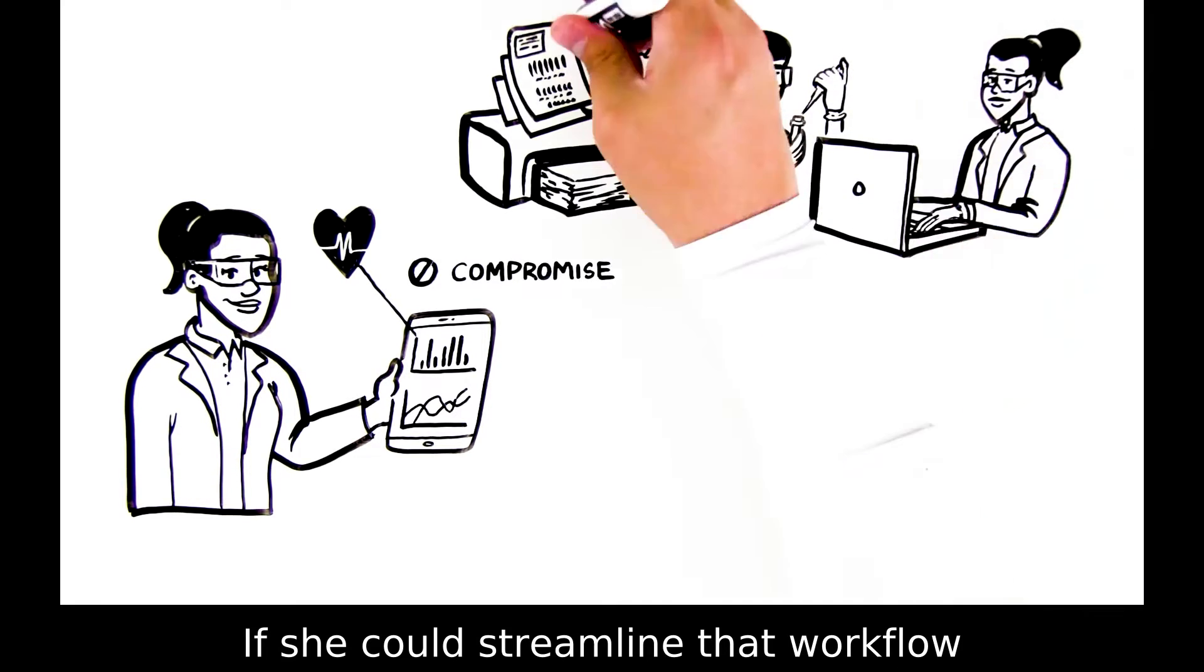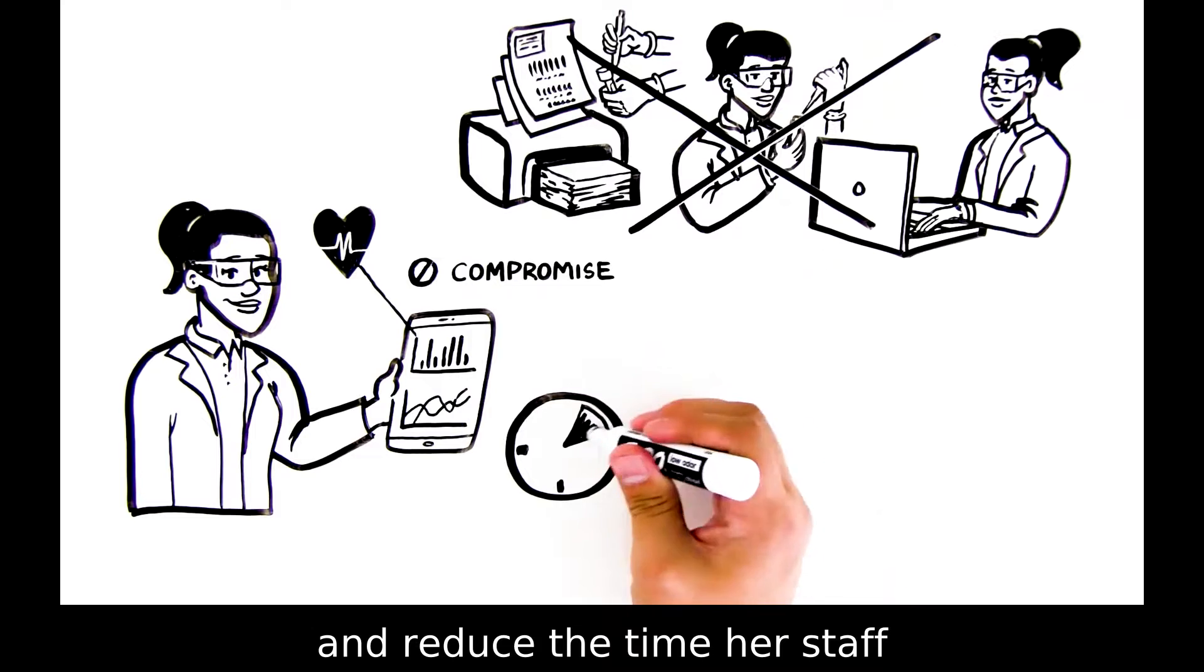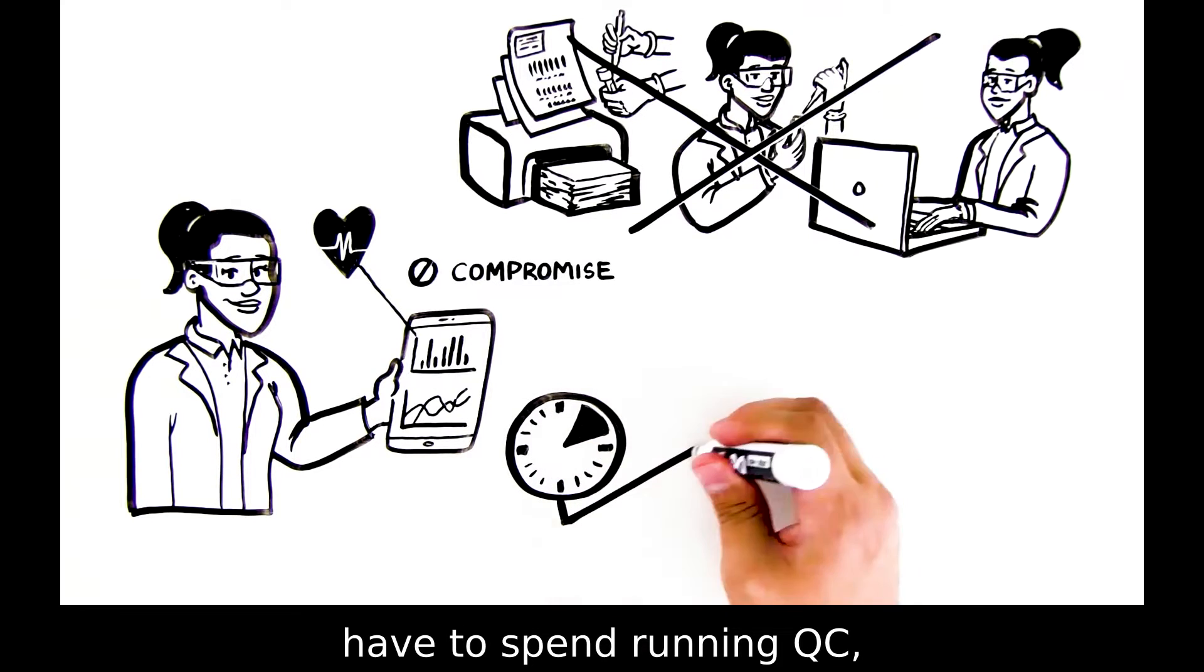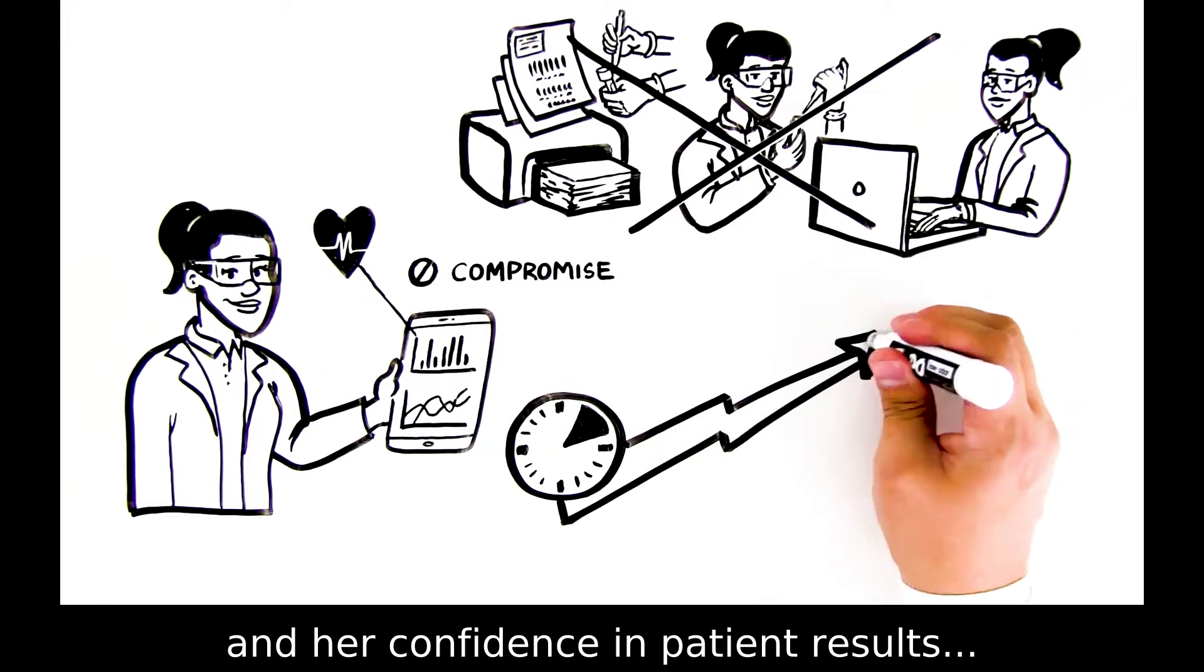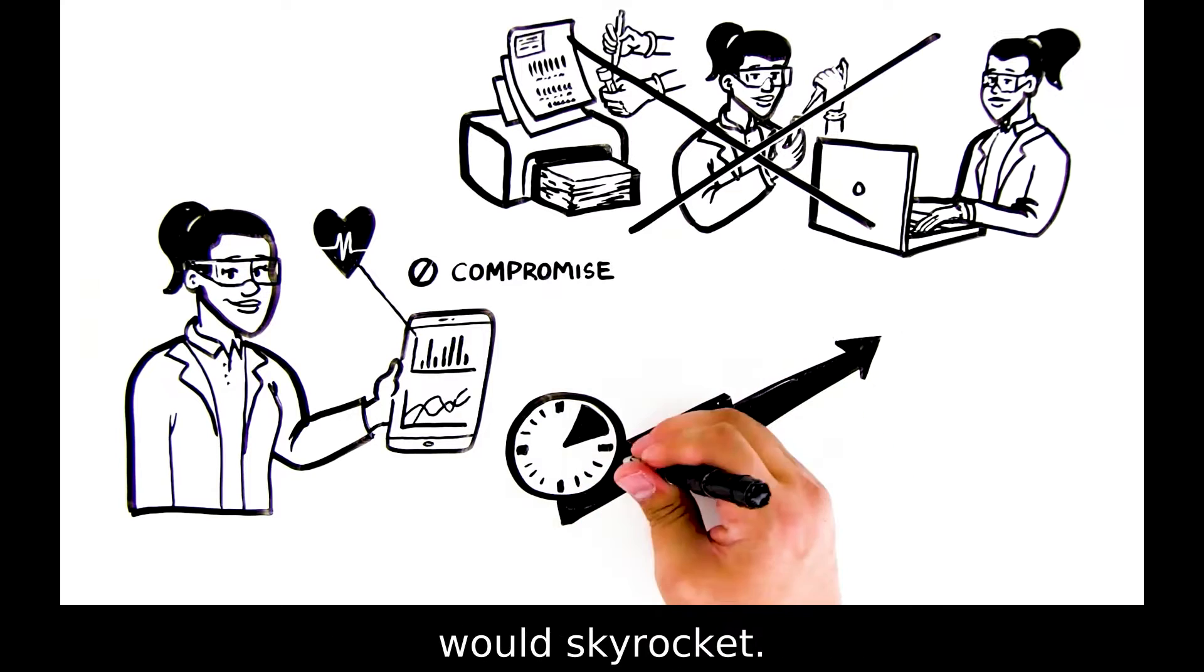If she could streamline that workflow and reduce the time her staff have to spend running QC, her lab's productivity and her confidence in patient results would skyrocket.